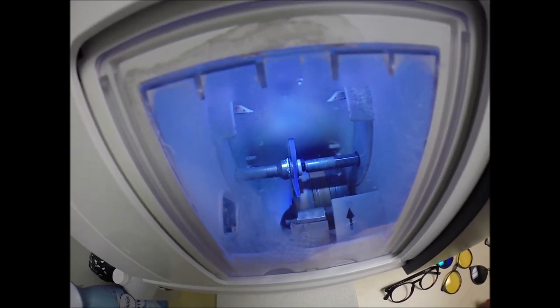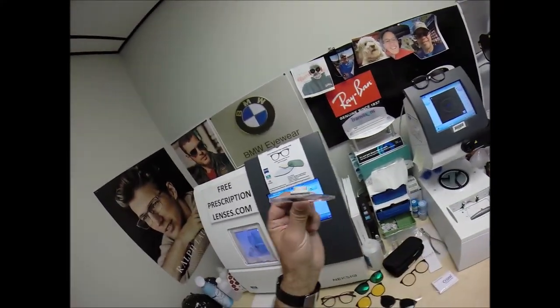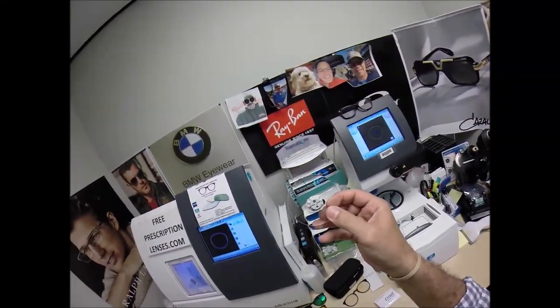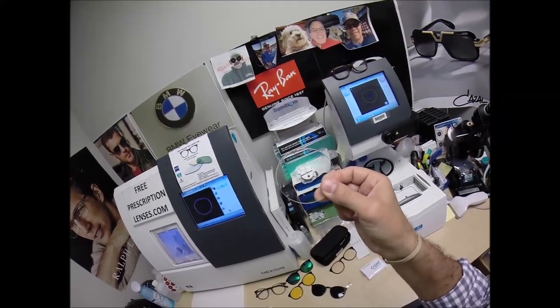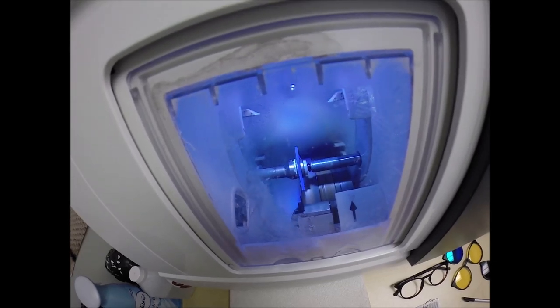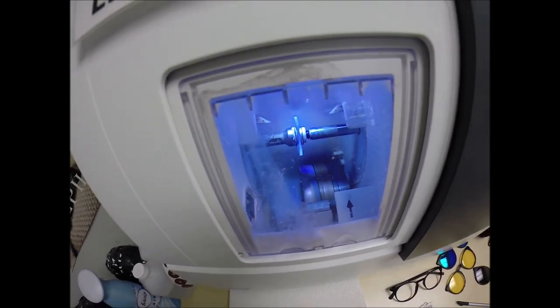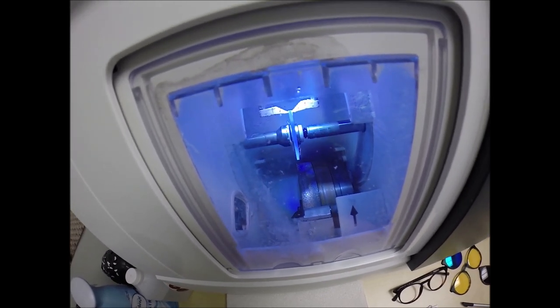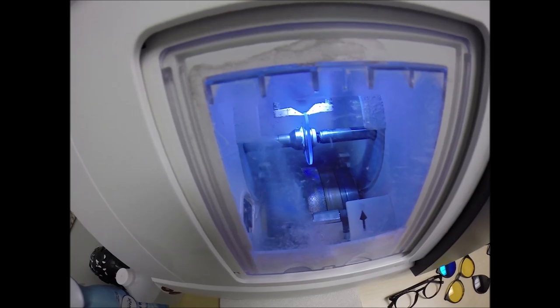Now water will spray onto your lenses, but only for the last 20 seconds to wash away any optical debris that you saw beginning to form on your lenses. But your lenses are made out of polycarbonate, which is 40% thinner and lighter than regular plastic. They are virtually unbreakable. These are high impact ballistics grade lens material, the same lens material that our soldiers wear overseas in combat zones to protect their eyes from shrapnel, from flying debris. It also has 100% UVA and UVB protection built into the lens.